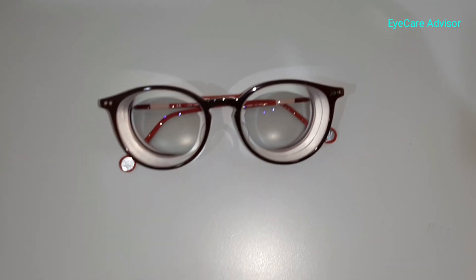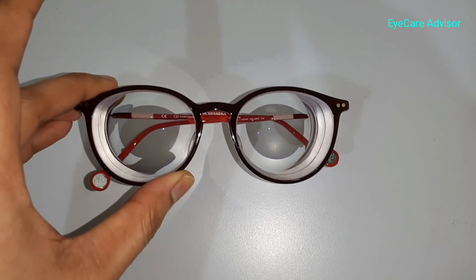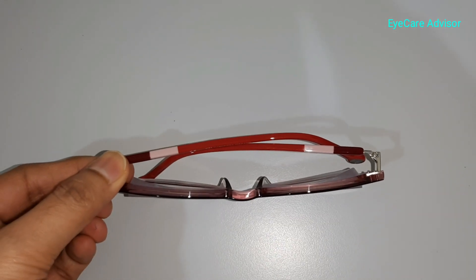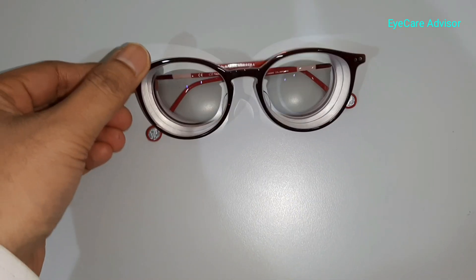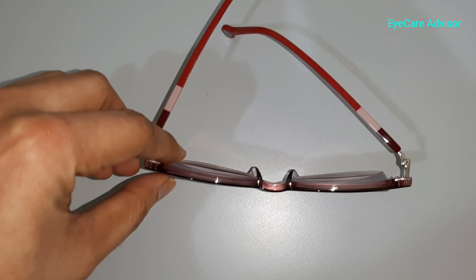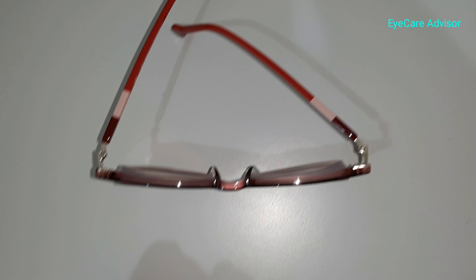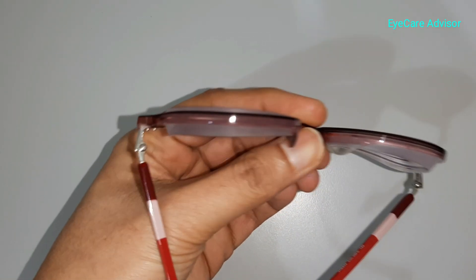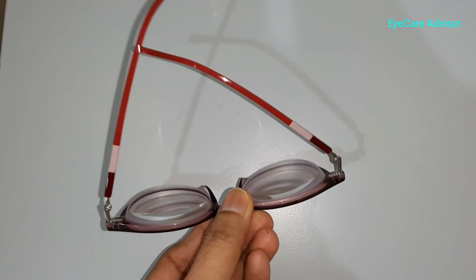The glasses are ready now. I will show you how the thickness comes — it's a very nice fitting by our technician. From outside you can see how it looks; from the top you can see the central thickness is very negligible, and in the periphery the sides the thickness is not too much. The central thickness is very less compared to the power of 17 and 15 prescription.